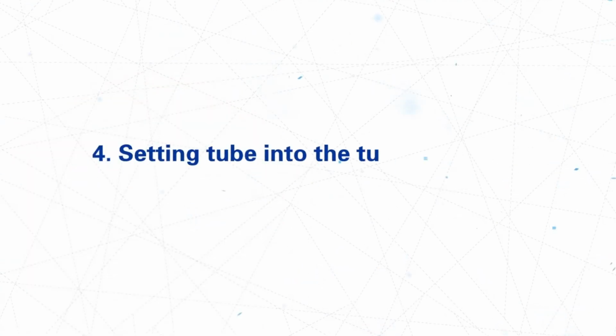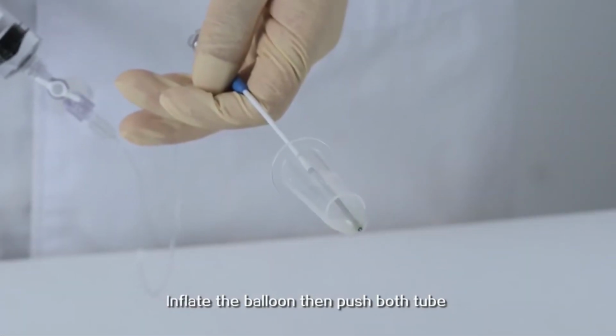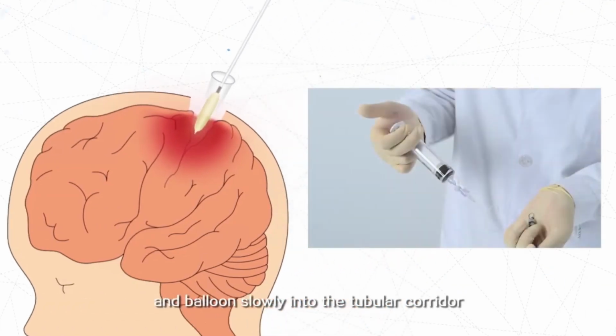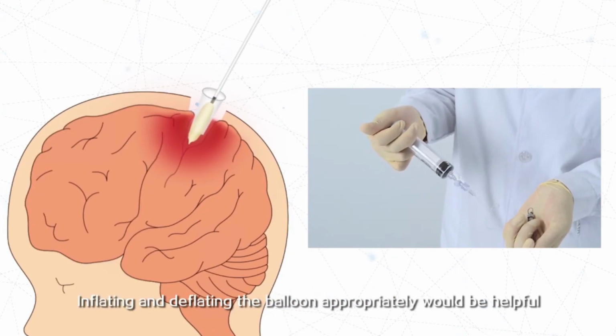4. Setting tube into the tubular corridor. Place the tube on the distal part of the balloon. Inflate the balloon, then push both tube and balloon slowly into the tubular corridor. Inflating and deflating the balloon appropriately would be helpful.